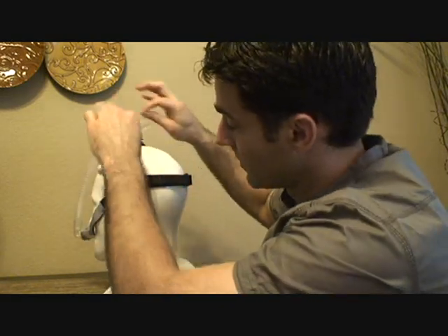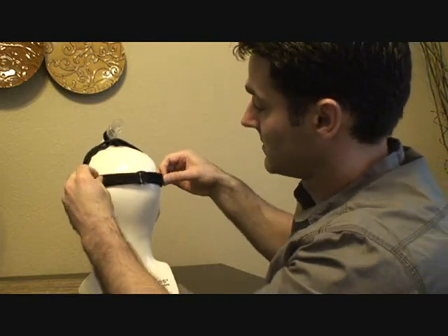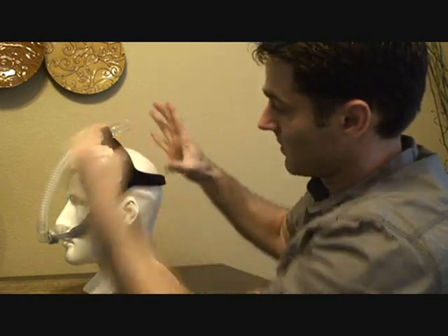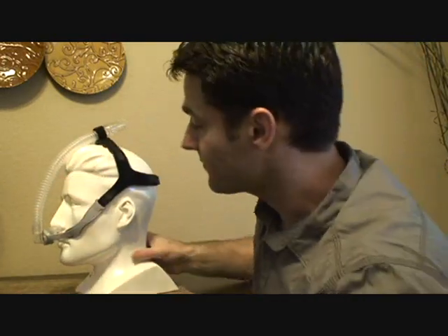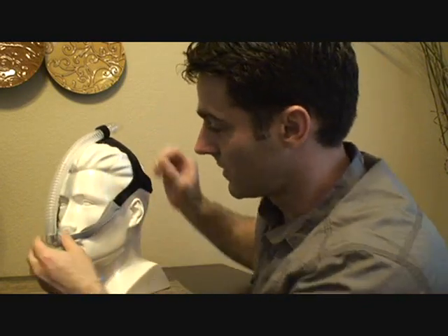You kind of have to do a combination of the two — a little bit on the top, a little bit on the back — and then see how that fits for you. It should close things up, making it come in tighter. Just toy with it.